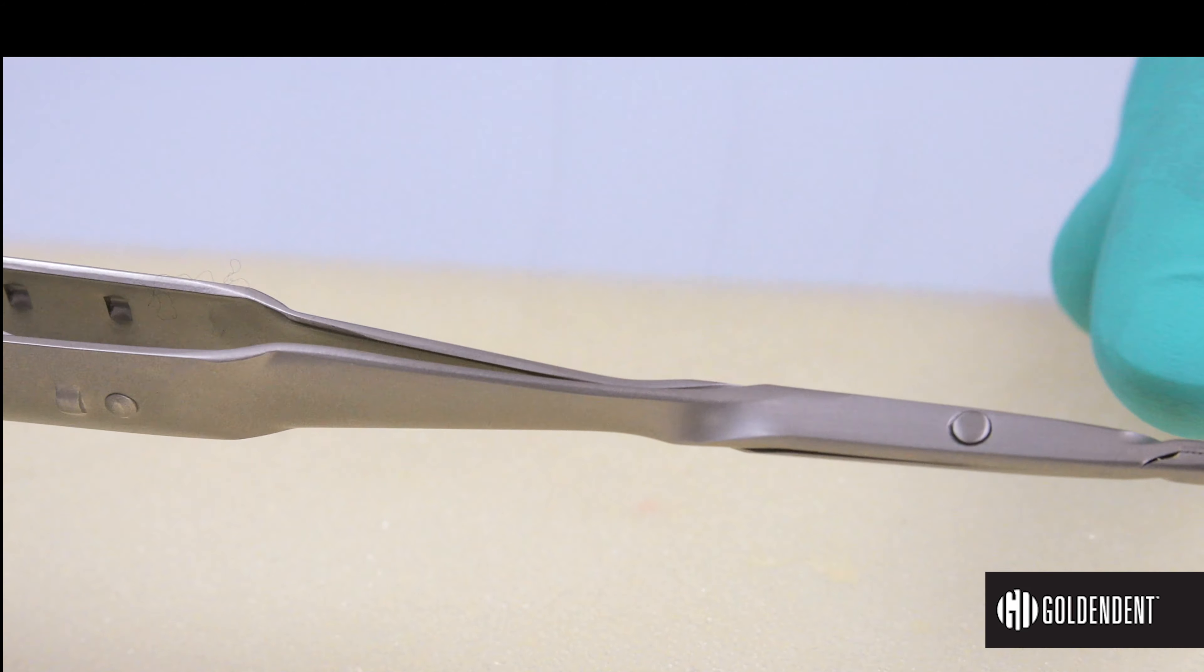It is a completely smooth construction. When the instrument is closed at the beak, there is a comfortable 4-5mm distance between the two sides of the locking mechanism, giving the user full control over the instrument.